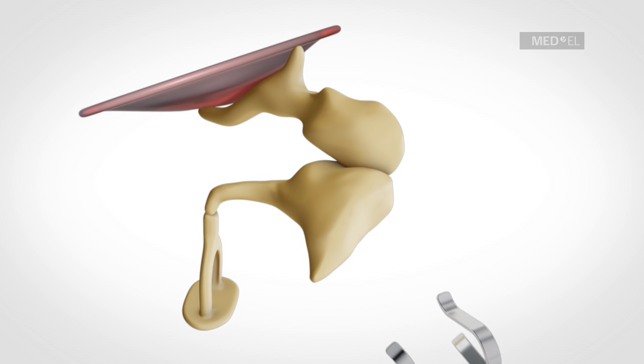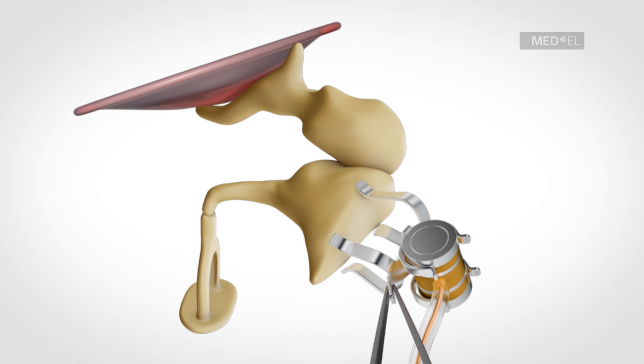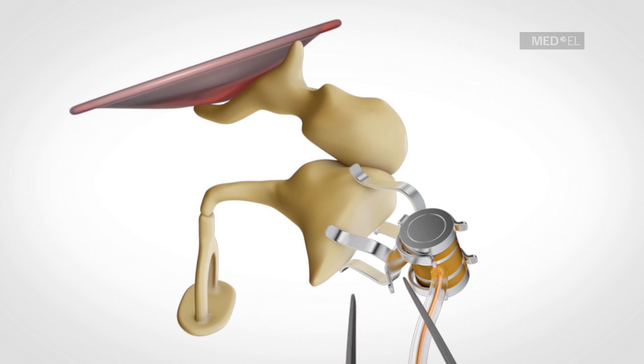It is inserted via a posterior epitimpanotomy, away from the facial nerve and the chorda tympani.